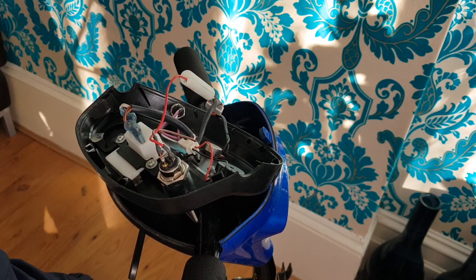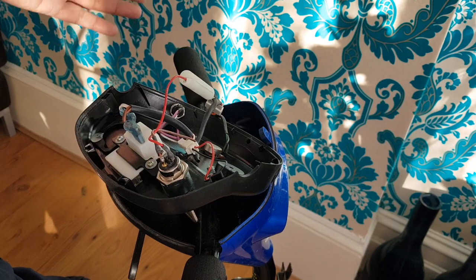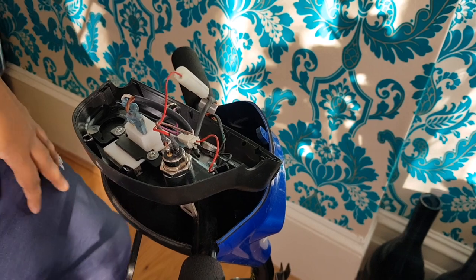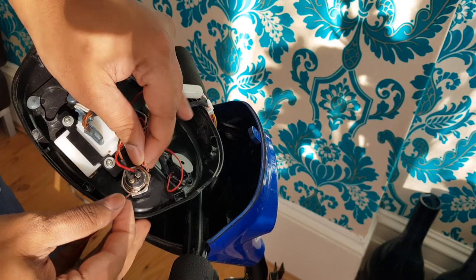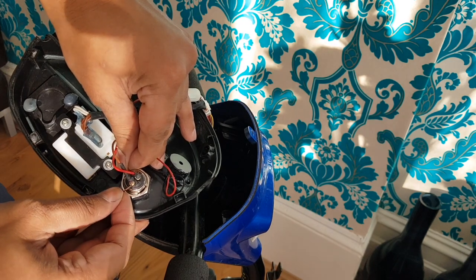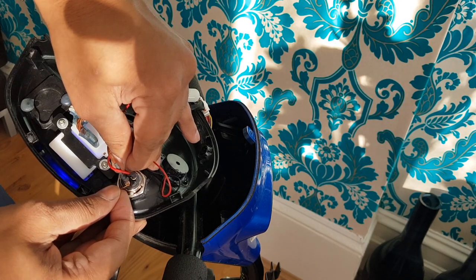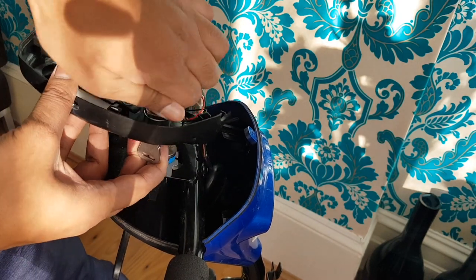What we can do is hotwire it — run a little wire to bypass the actual key barrel. If it starts up, then we know the key barrel is dodgy and we can get a replacement. I've got a little wire here. It's lit up — can you see that? That little wire light is lit up, which means it's powering up. So the switch is bad. What we need to do is get this switch off — unscrew it from the back; it's already a bit loose.